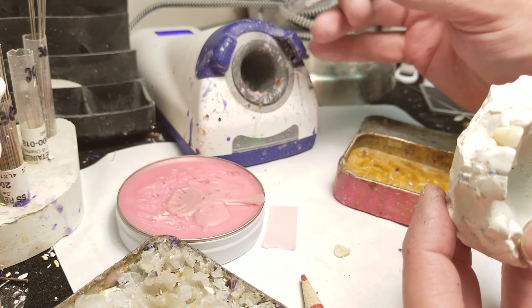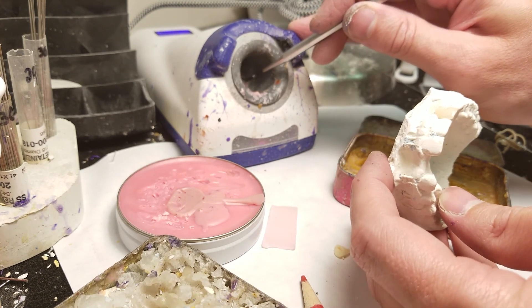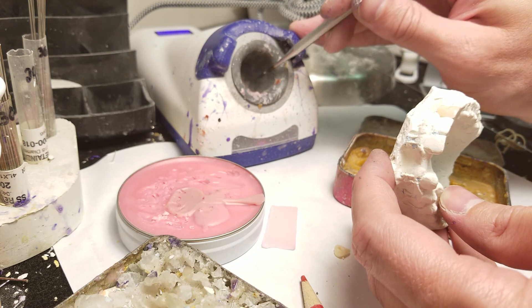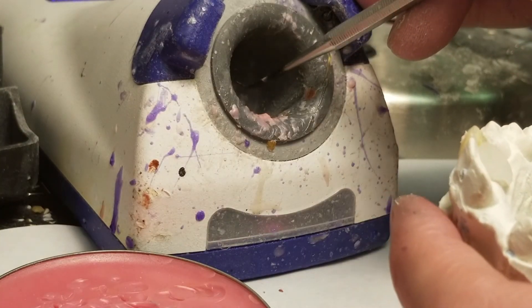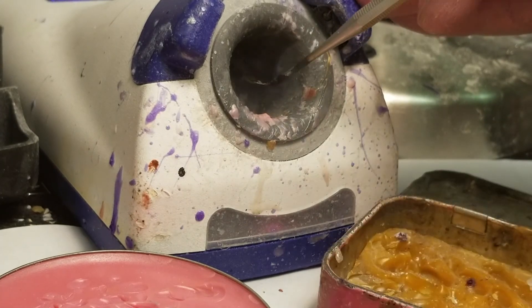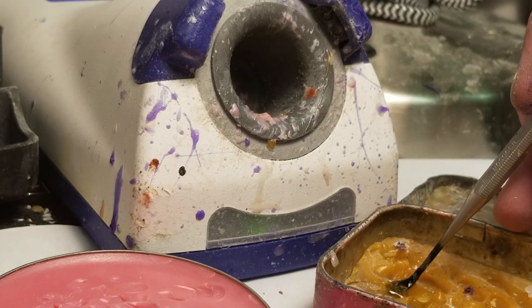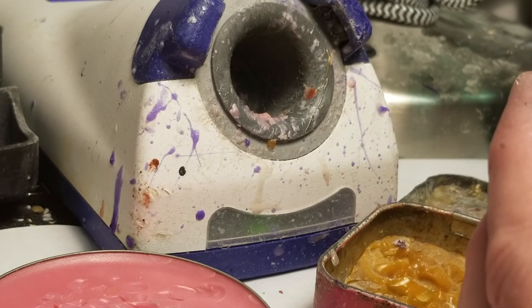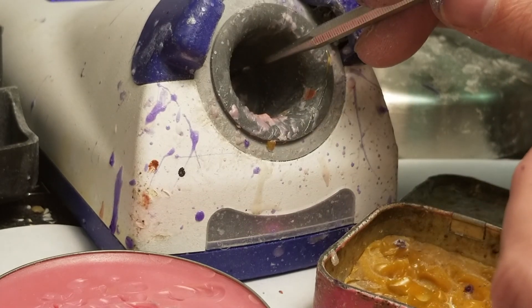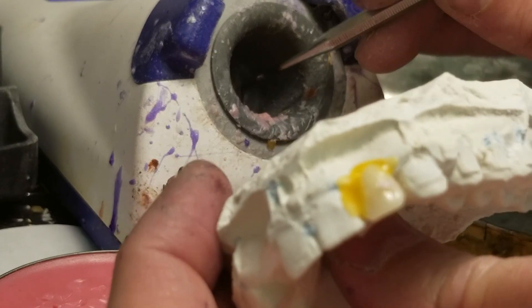See that light down there — it's green, then it turns red. When it turns red, that means it's active. See how that instrument is already heating up and I'm getting smoke off the wax. You can see the light a little better now — see how hot that's getting. Your instrument is warm. The trick is to keep sticking it in here for one or two seconds to keep that warmth going, or it'll cool too fast — that's one of the complaints about it.